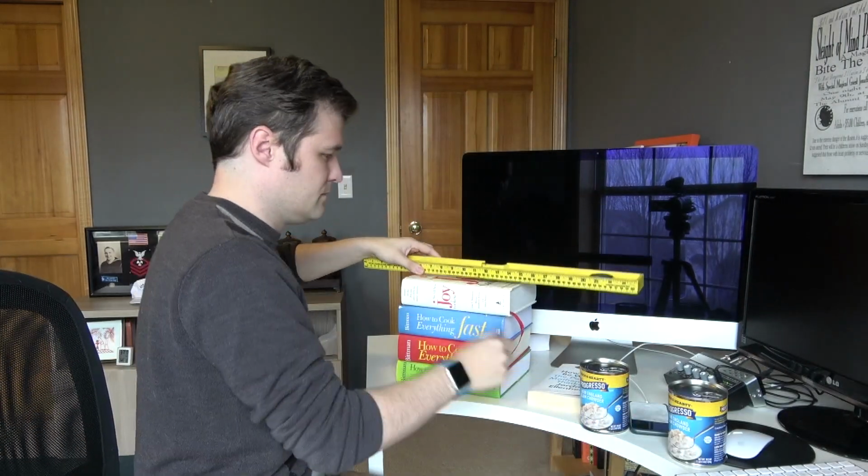I work for Minnesota State Services for the Blind, and in this video I'm going to be teaching you how to use your iPhone or other smartphone as a digital magnifier. We're also going to talk a little bit near the back end on how to make an impromptu stand to use for an app like Seeing AI or KNFB Reader, for example.